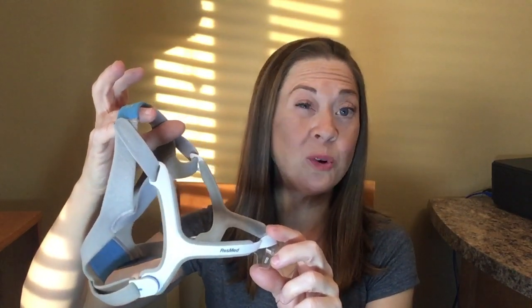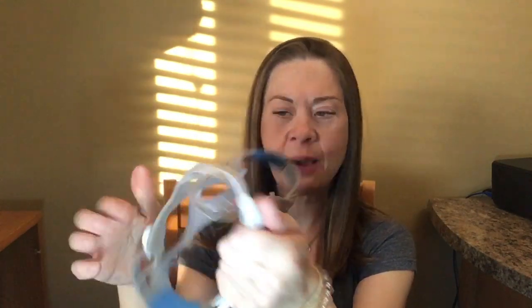With your headgear, you should be cleaning this once a month or as needed. Some people have oilier hair or skin particles that rub off on it a lot, but at least once a month. You submerge it in warm soapy water and give it a really good scrub. Rinse it really well, then take a towel and squeeze the headgear in the towel — that almost dries it — then hang it up somewhere for the rest of the day. It's a good idea to wash it in the morning so it'll be dry by that night.